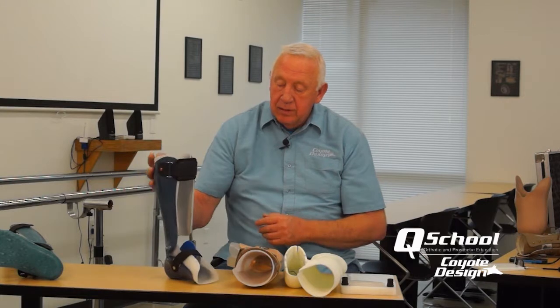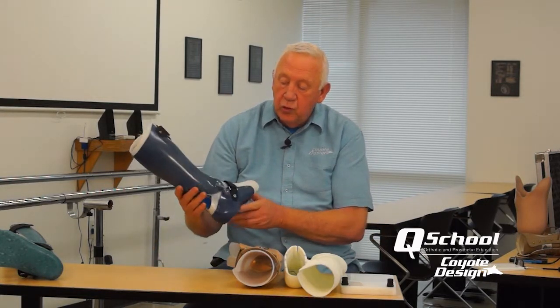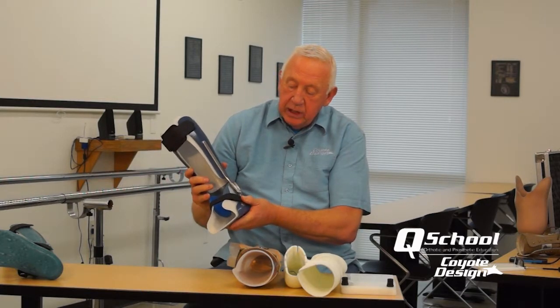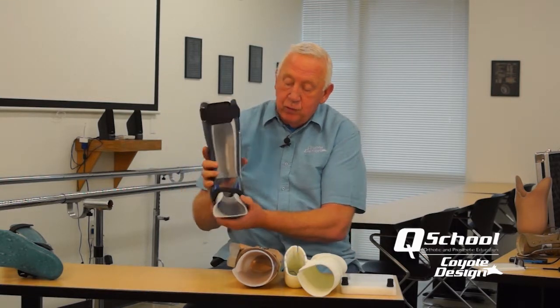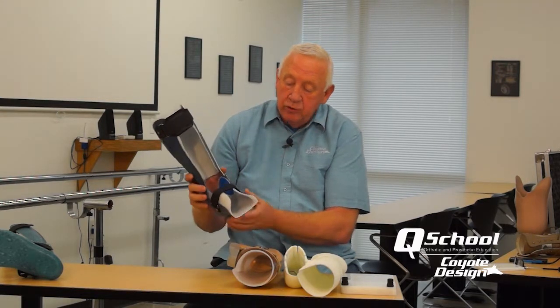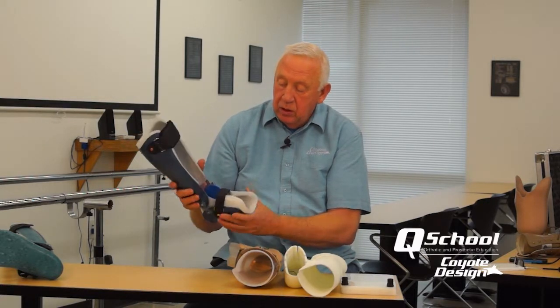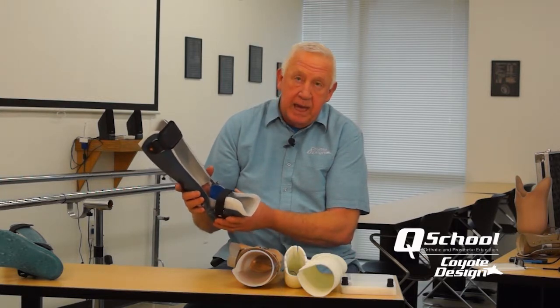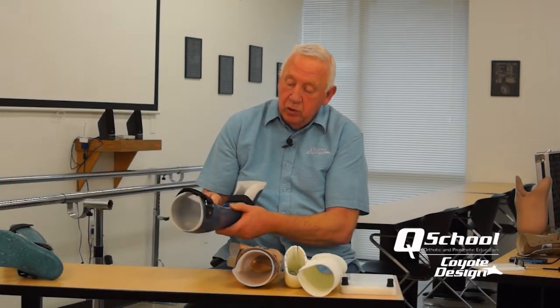Another composite method in this course is our typical hinge design, used mainly for ankle arthritis. It has a double adjustable joint that controls dorsiflexion and plantarflexion, and is constructed from composite for really good rotational and medial-lateral control — the two main contributors to pain with ankle arthritis. Blocking dorsiflexion can also significantly help relieve pain in ankle arthritis.